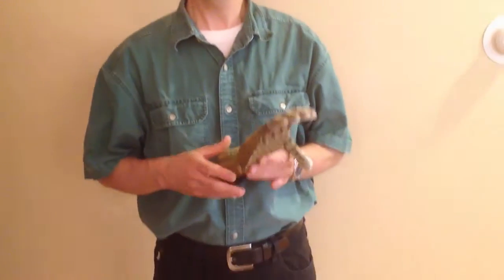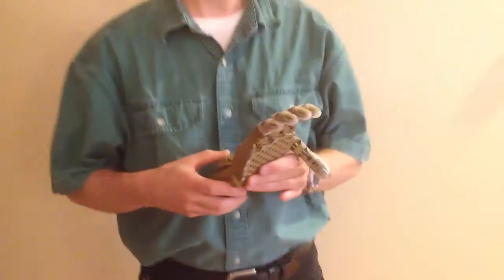Hello, I'm John Diamond and I'm a volunteer with the Enable Community Foundation. I want to take a moment today to show you how I would go about assessing the quality of the build of an Enable Phoenix hand.